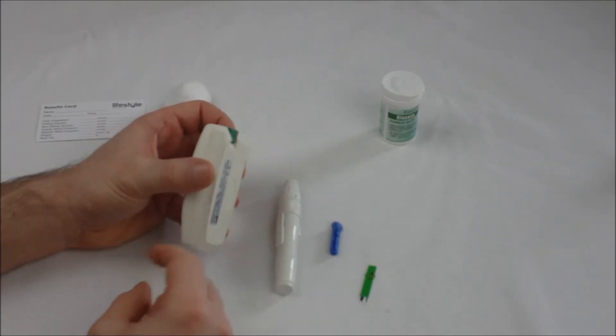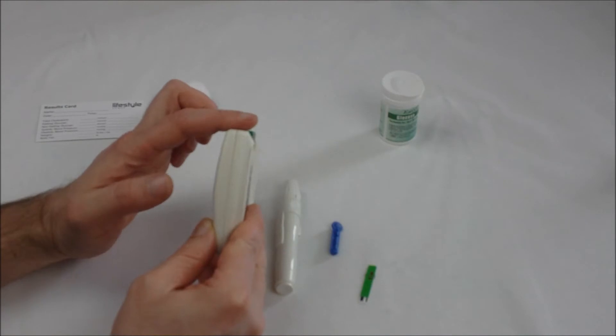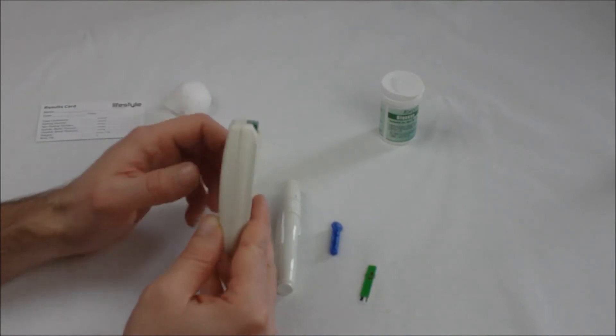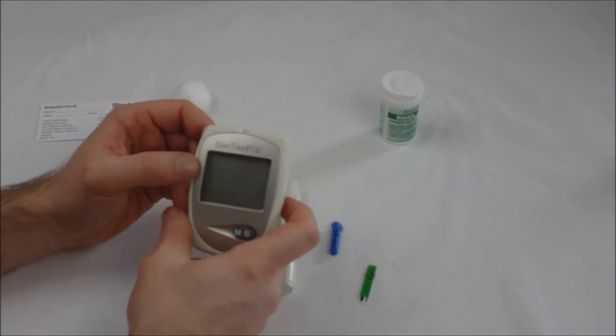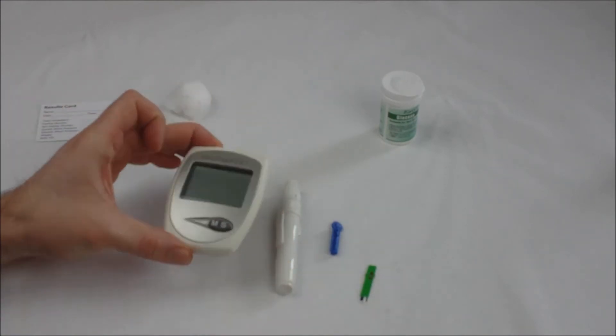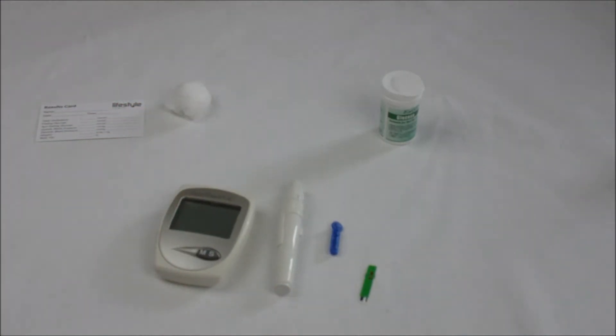You'll see that the top of the code key lies flat with the monitor. Once that's in, the monitor will know which test strips you're using and you're ready to proceed with the test.